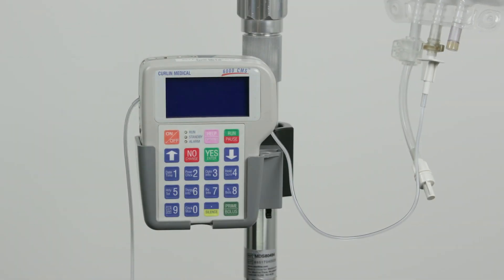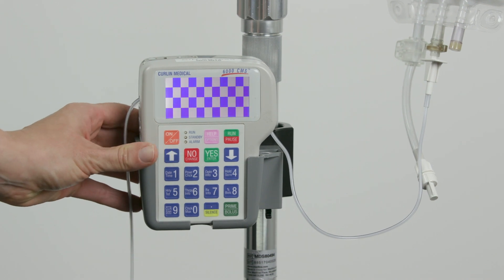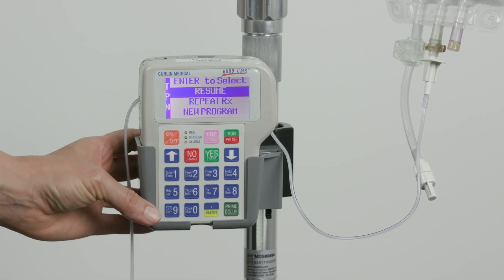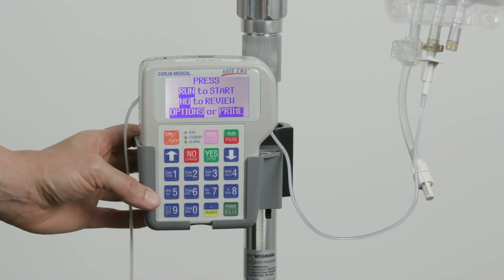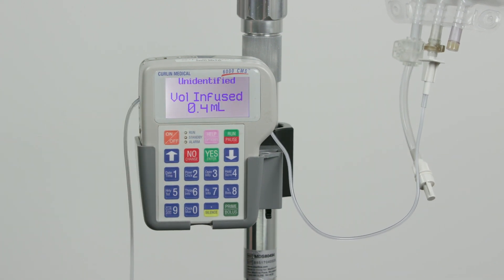If you want to continue the infusion, press the On button to turn on the pump. The display window highlights Program. Press the Yes Enter button. The display window highlights Resume. Press the Yes Enter button, then press Run to restart the HPN infusion. Check to make sure the green light is flashing and the pump is running.